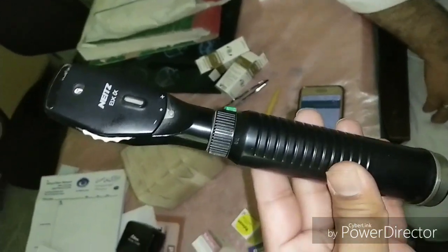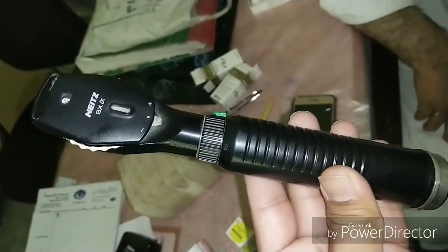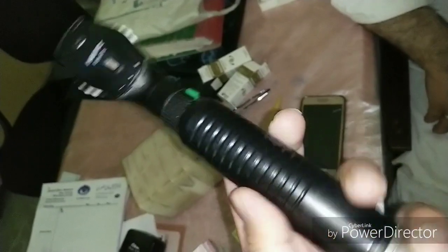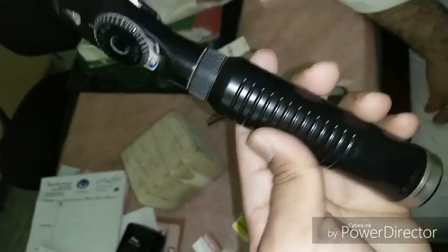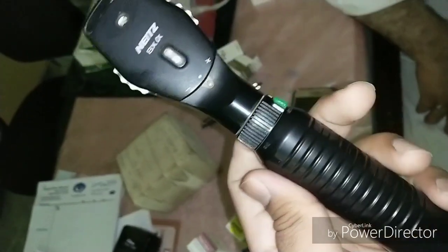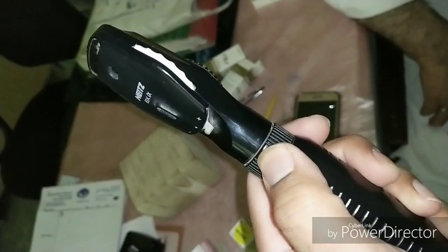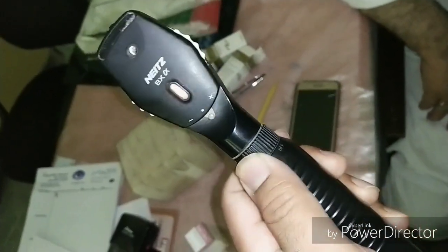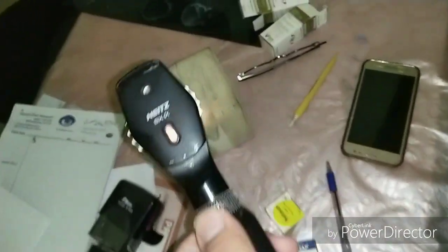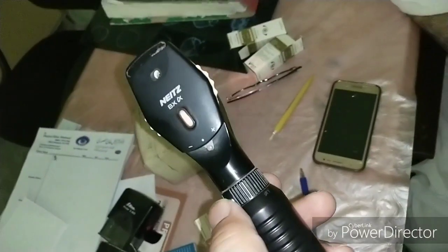Hi, I'm Dr. Sharjee, and today I would like to demonstrate how to use the direct ophthalmoscope, also known as fundoscope, because we see the fundus of the eye with it. We hold it with a handle; the handle consists of a battery inside it, which can be in the form of rechargeable cells with a wire. Here is the on/off button — you have to press the button and while pressed, move it to the left to increase the intensity of the light beam.